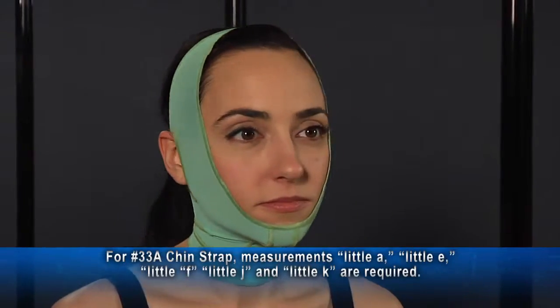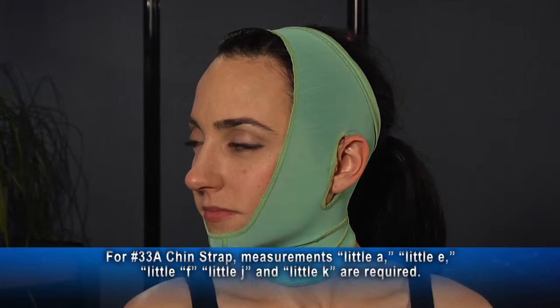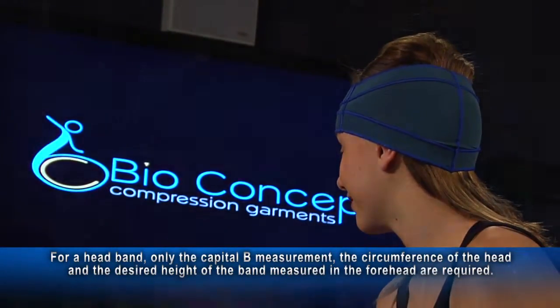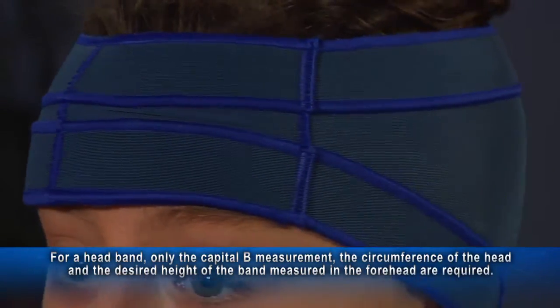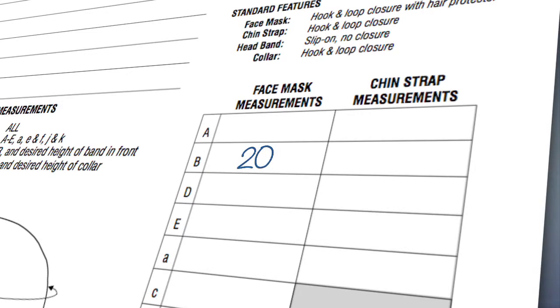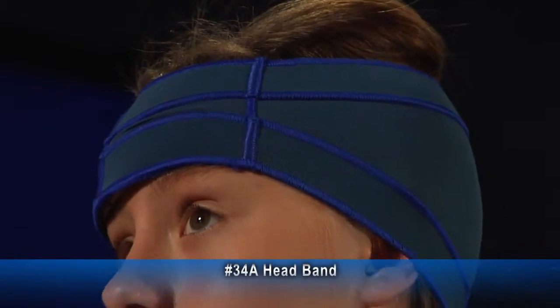When measuring for a chin strap, measurements little a, little e, little f, little j, and little k are required. For a headband, only the capital B measurement — the circumference of the head — and the desired height of the band measured at the forehead are required. On the head and neck measurement chart, write capital B in the space provided and write the height in the blanks for additional instructions.